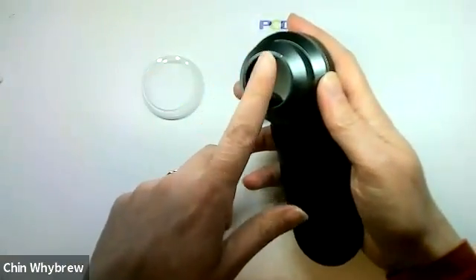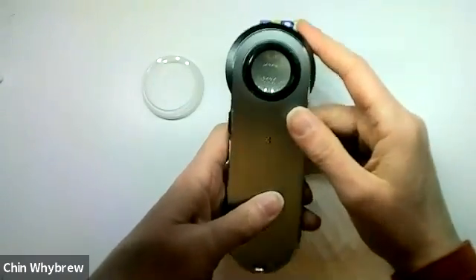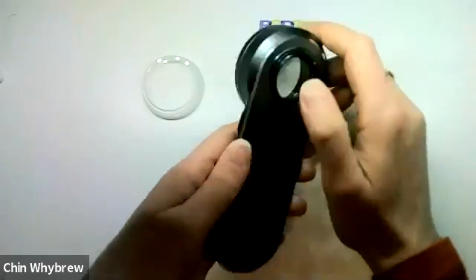It has a good sized end plate, and it has very good focus to the edges of the field, and works very nicely like that.